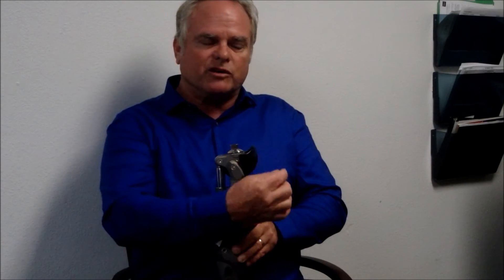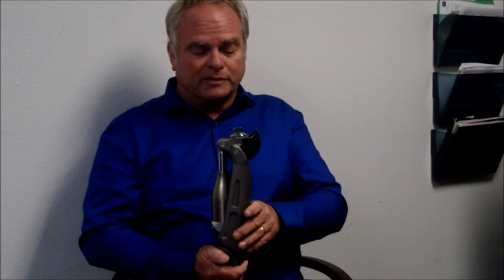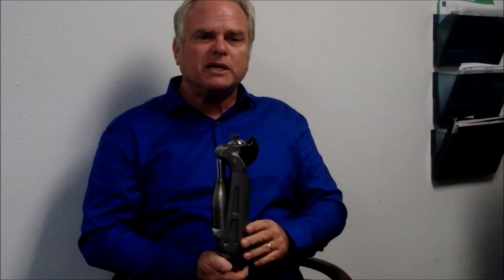Now, I've demonstrated this, substituting this knee for microprocessors that have an anterior to weight line bench alignment, and this has worked just fine. I don't recommend it, however. So, that's bench alignment.